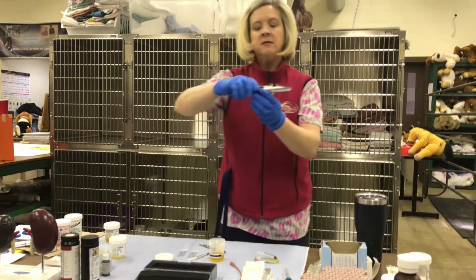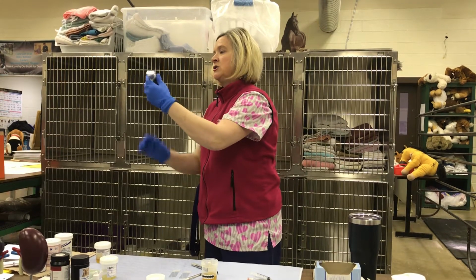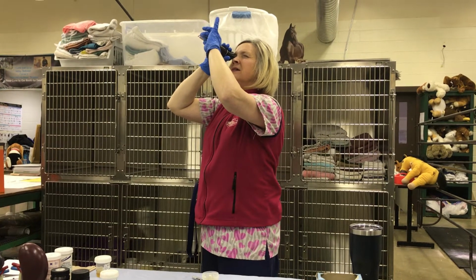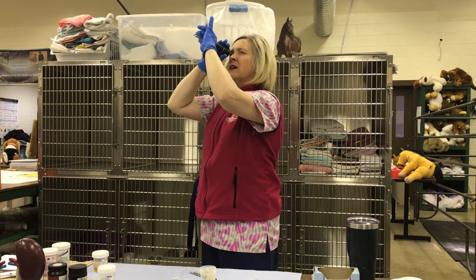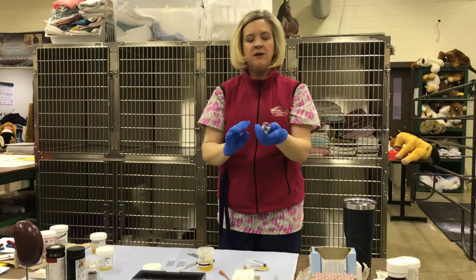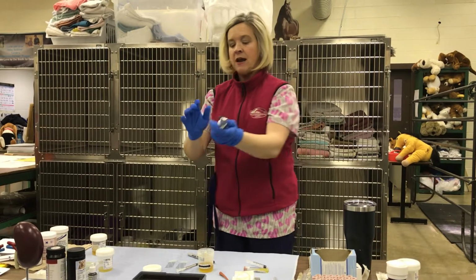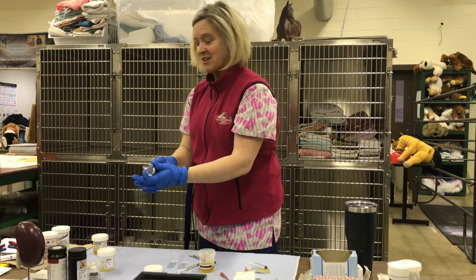Your refractometer is an instrument that's going to measure specific gravity, or the concentration of the urine. So what you're going to do is hold it up to the light, and where the blue and the white line meet, you're going to take your reading. Right now, this specific gravity is at 1050. You're going to look at the column all the way to the right of this particular refractometer. It's 1050. When you clean this, you're going to run it under the water and use a soft towel to clean it, and then place it back into its case. Do not use anything that can scratch it, like a Scotch-Brite.